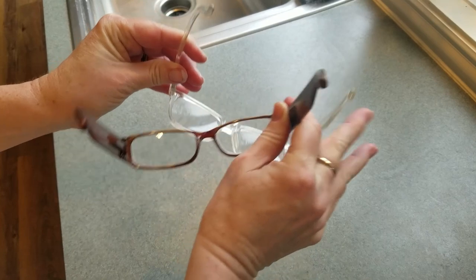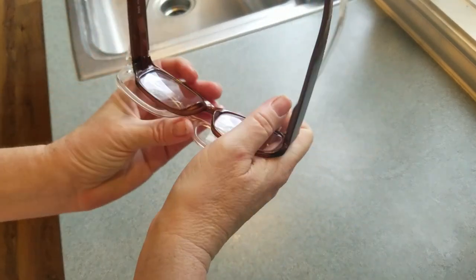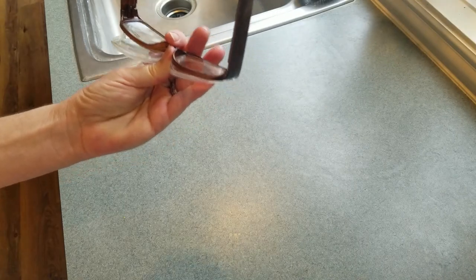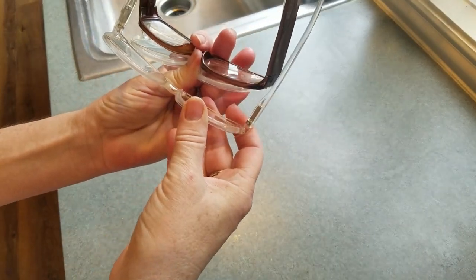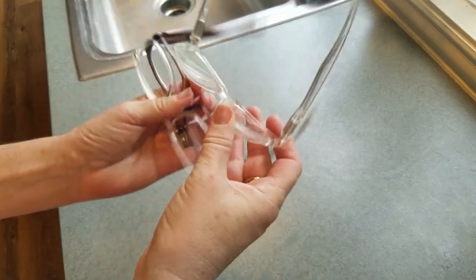I put the small one on, then I put the larger one on the outside, and then if I need to, I can put a third on. So with two I can see pretty well. When I get to three, I have to kind of be working this close to really see the subject.